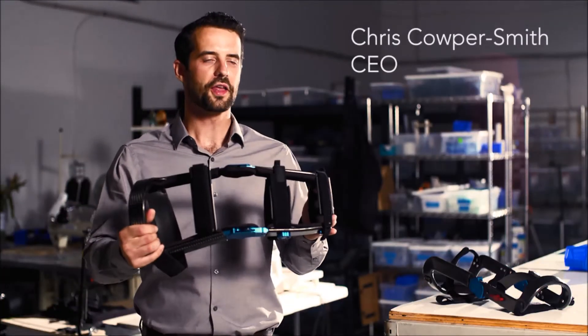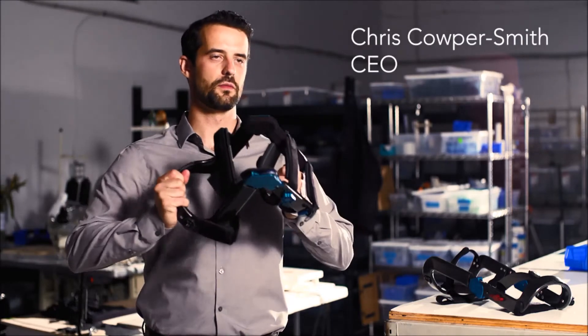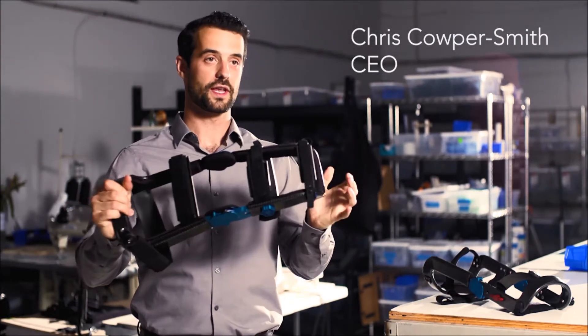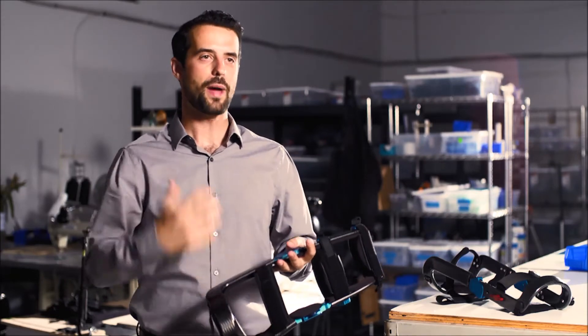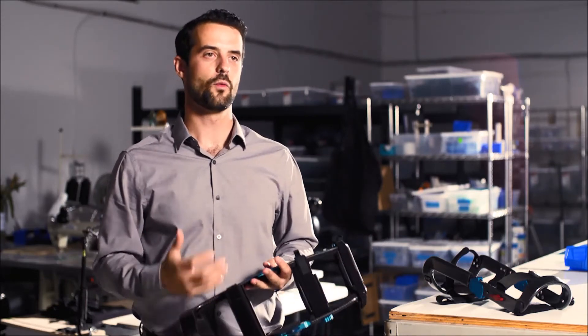Our first technology is a bionic knee brace that loads energy as the user bends their knees and then restores that energy upon extension, thereby helping the individual up from seated back onto their feet and back to the things that they want to be doing in life.